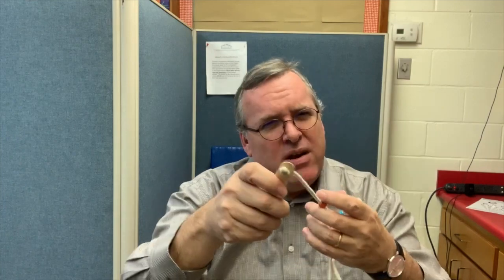We want to make sure that they're seeing one bead, which means both eyes are focused on one point in space. Then we want to make sure they're seeing two strings that meet right in front of that bead — as if one string is coming from one eye and one from the other, meeting at the front to form an arrow.